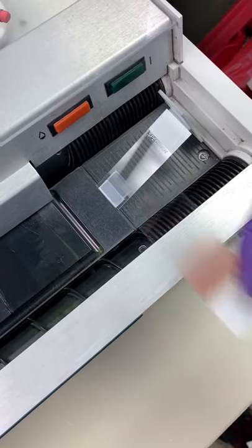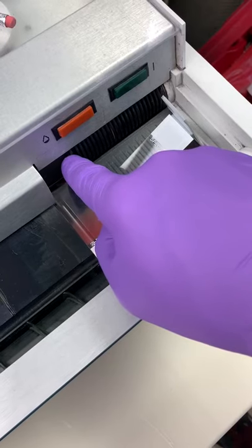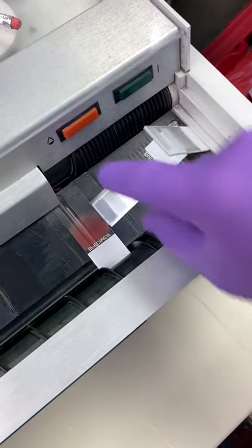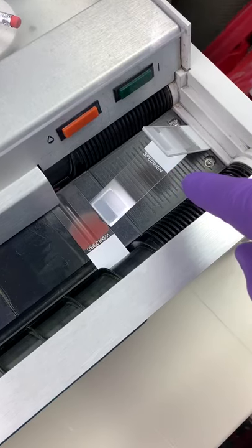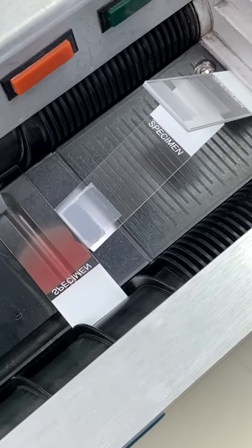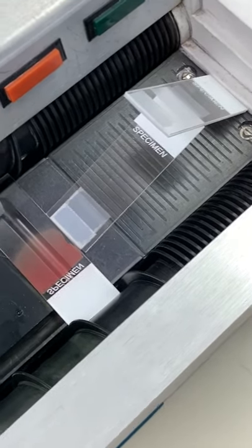Is your Hemathek breaking slides? I've got a solution for you. Ours will always break a slide because this right here gets rough. But this little guy right here — and if you could zoom in on that a little bit, get closer — that will escort your slide in so that it doesn't get cracked.